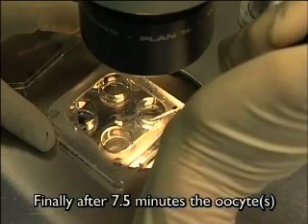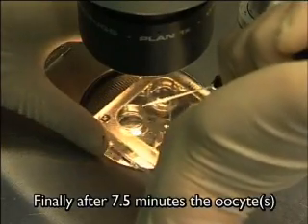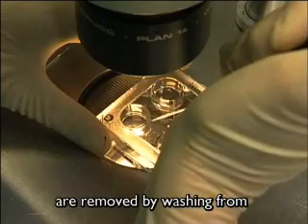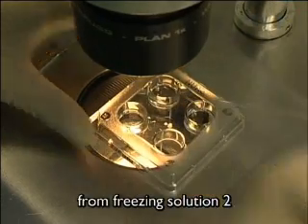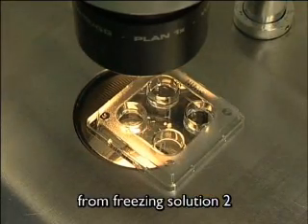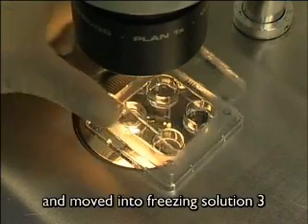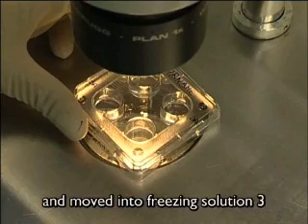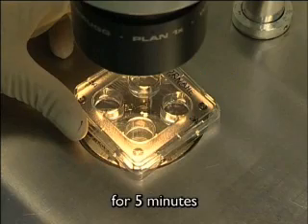Finally, after 7 and a half minutes, the oocytes are removed by washing from freezing solution 2 and moved into freezing solution 3 for 5 minutes.